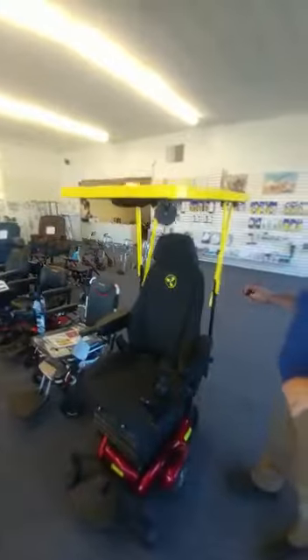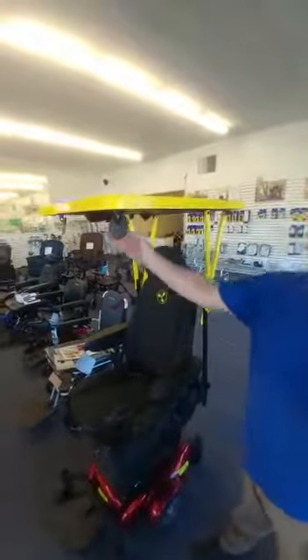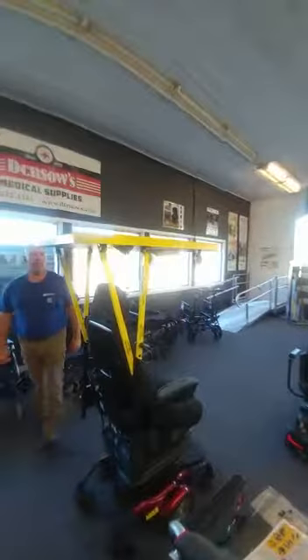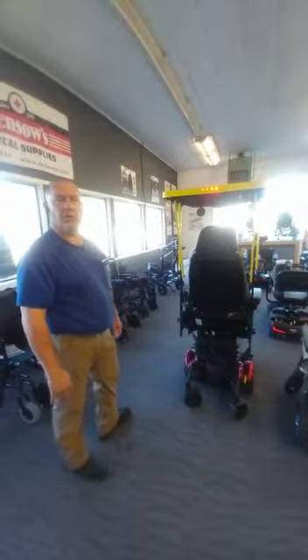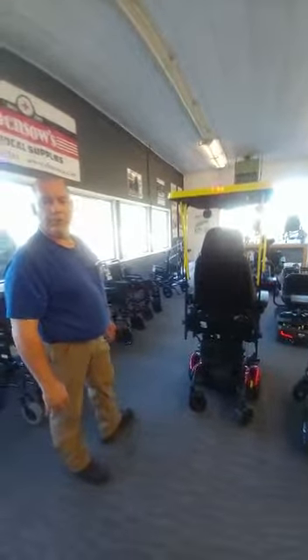This is not your grandpa's wheelchair. This is a new state-of-the-art, American-made, veteran-owned product made right here in America. You have lights so people can see you, and the lights can blink, go on and off, or stay straight on — we prefer the blinking for visibility. This is the Liberator by Solar Mobility, the state-of-the-art American product in the marketplace right now, a far better product than what's out there. Thank you.